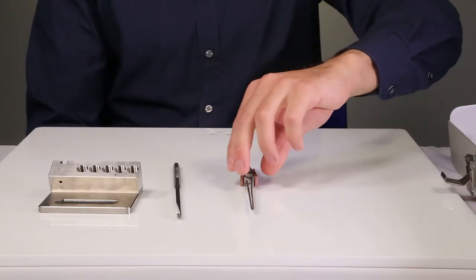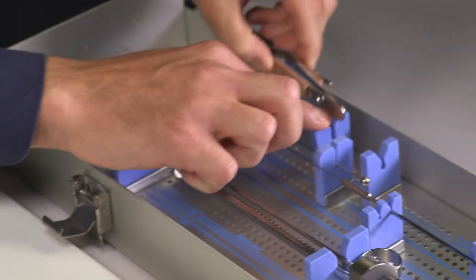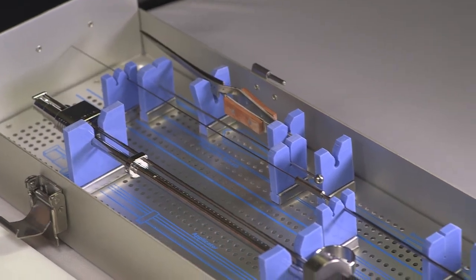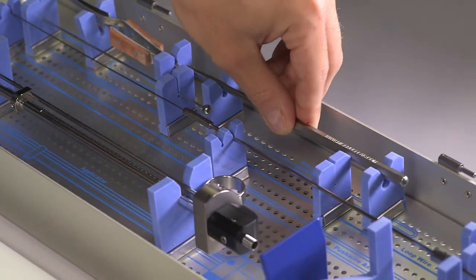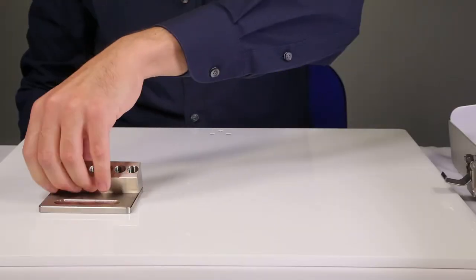For best cleaning results, we highly recommend keeping the positioning of the items in the sterilization cassette for the cleaning process.